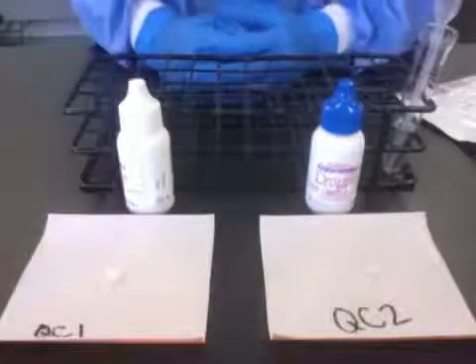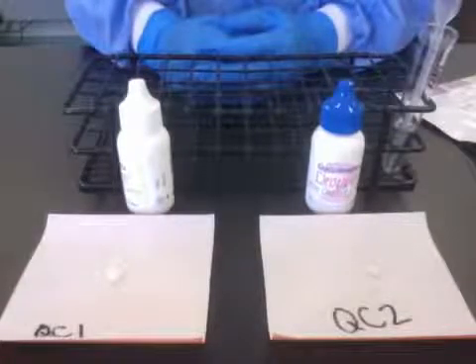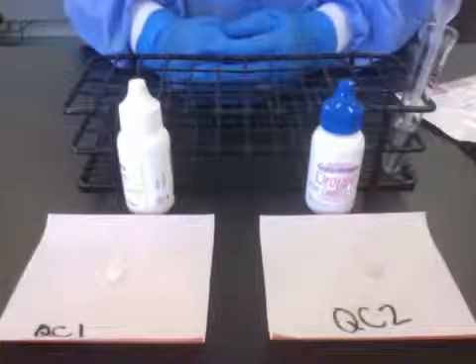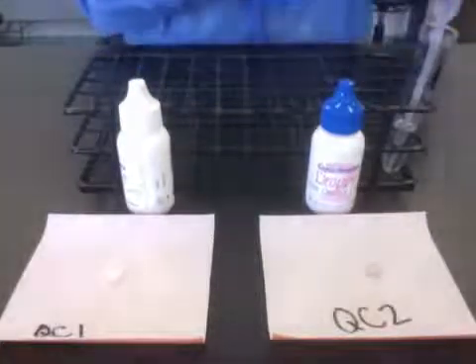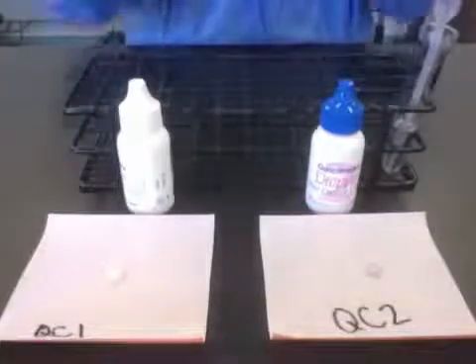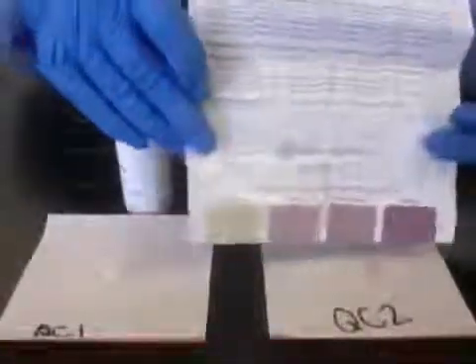Now we're going to wait 30 seconds for the results. I follow the package insert exactly and compare the color on the tablet after 30 seconds to this package insert. A negative result will be somewhat tan colored and a positive result will have a degree of purple color. I just compare the result here to the package insert. So I would say this QC2 is moderate and this QC1 is negative.